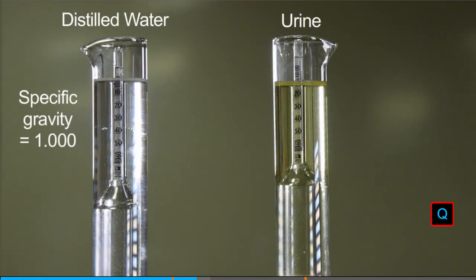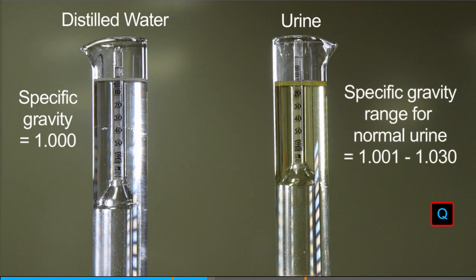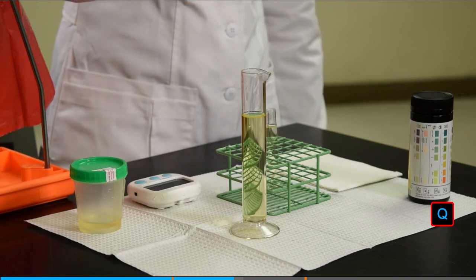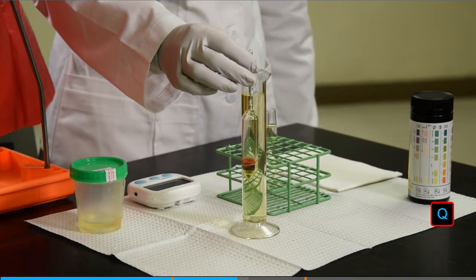Specific gravity is the relative weight of a solution when compared to the same volume of distilled water. The specific gravity of normal urine should be between 1.001 and 1.030. Drinking a lot of liquids could result in dilute urine and therefore a low specific gravity reading. A urinometer is a hydrometer that measures the specific gravity of urine.